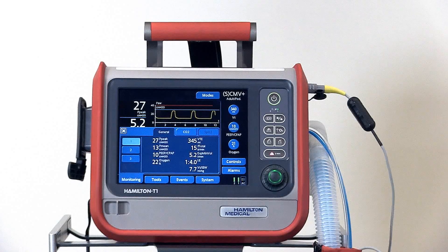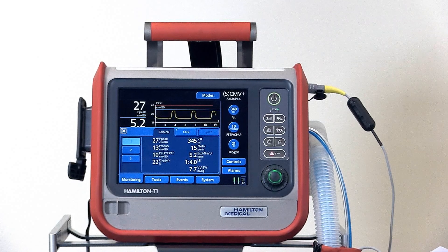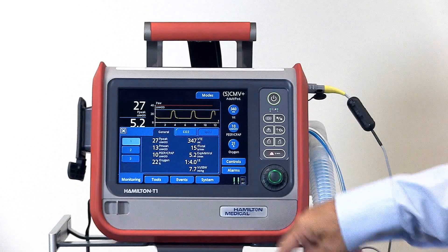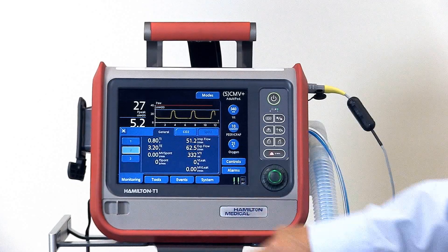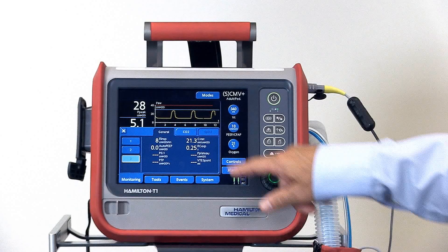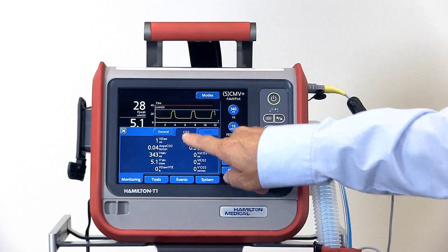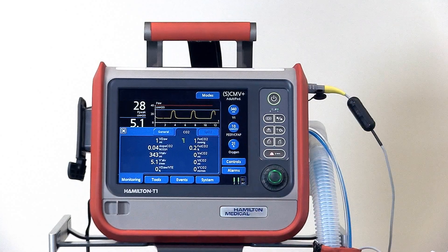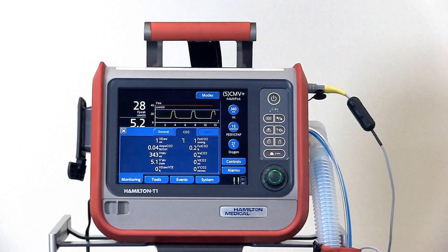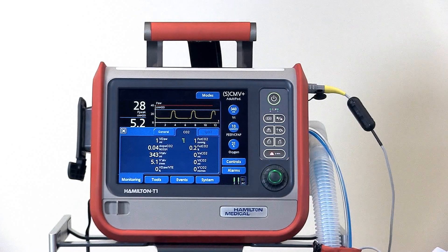The next tab over is the Monitoring window where you'll see all the monitored values available on the T1. There are three different sections with different monitored values, a separate tab for CO2 information, and a separate tab for SpO2 if that were activated.